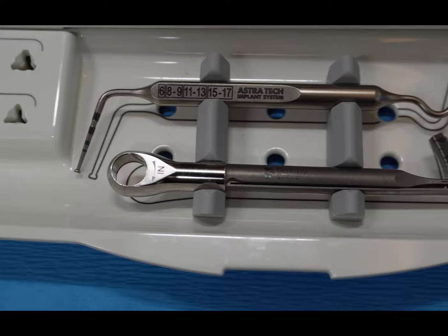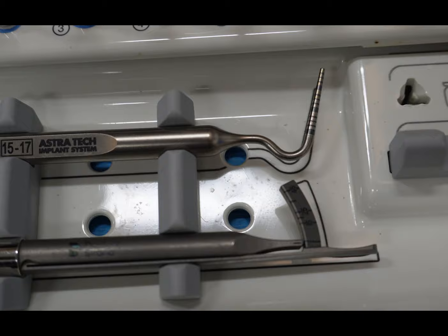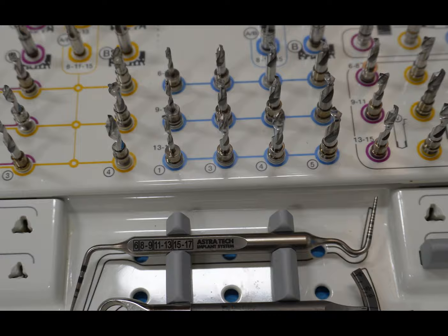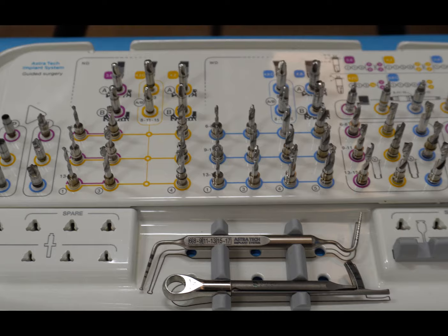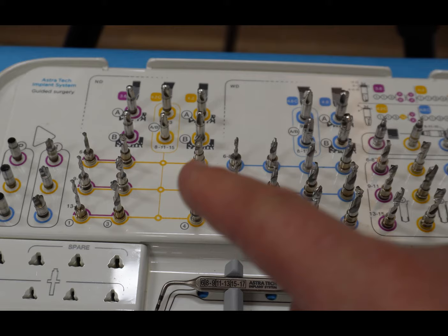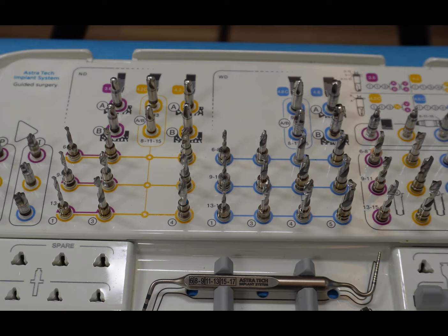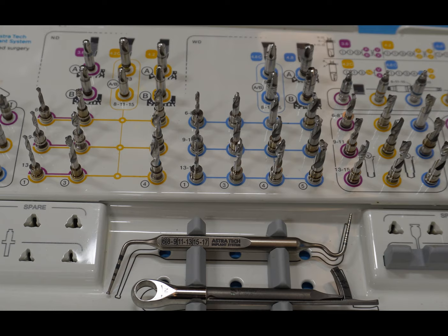We have our driver, our torque wrench, and the ability to measure with a protected end in case we're near the sinus, or a blunt end for measuring the depth of our osteotomy or gingiva. As for the Astra surgical kit, what I always do is only take out the burrs I'm actually going to be using in the case, so I'm not getting any debris, blood, or contaminants in the kit. We then run them through ultrasonic and sterilize the whole kit again, ready for the next case.